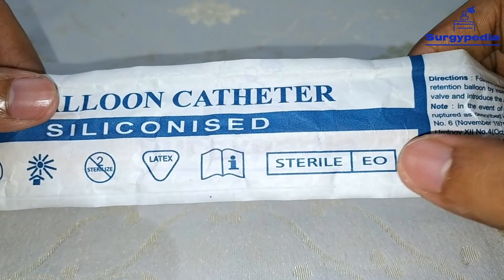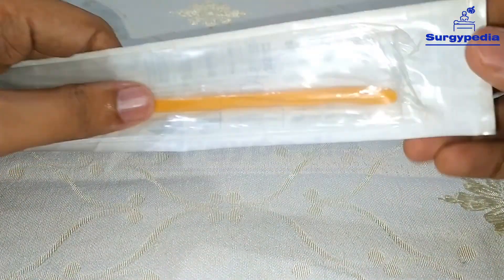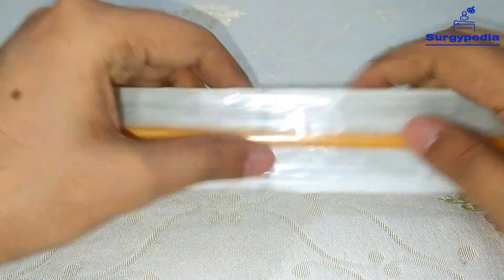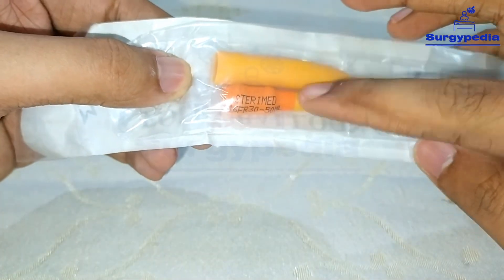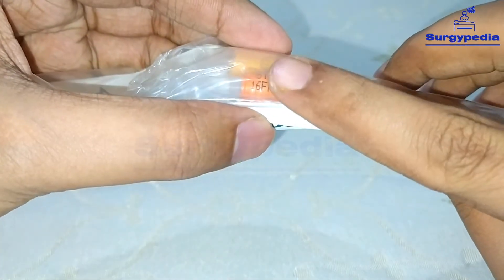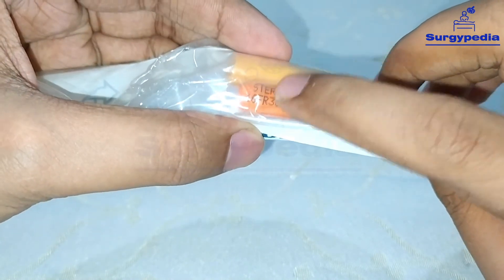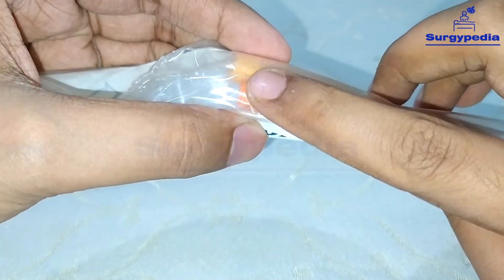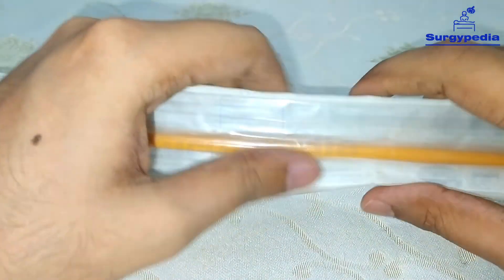This catheter is sterile — EO means sterile by ethylene oxide, as covered in our general surgery sterilization topic. This is the Foley's catheter inside the sterile pack. As you can see, this is a two-way Foley's catheter — this is the main channel and this is the side channel. The size and balloon capacity are marked here, and this color is the color coding; 16 French is orange, though you don't need to remember the color coding.